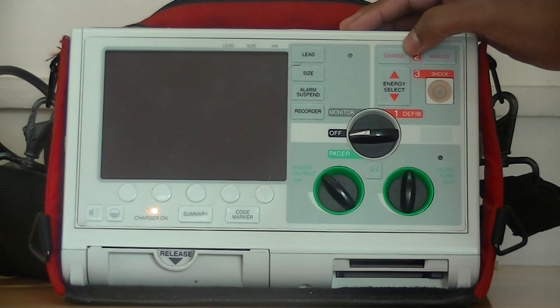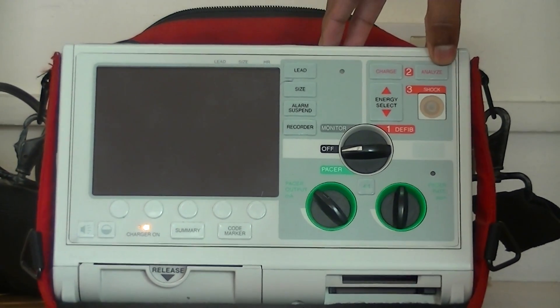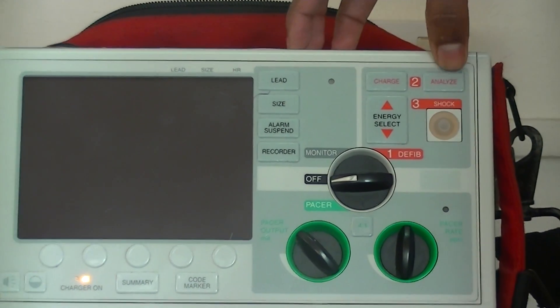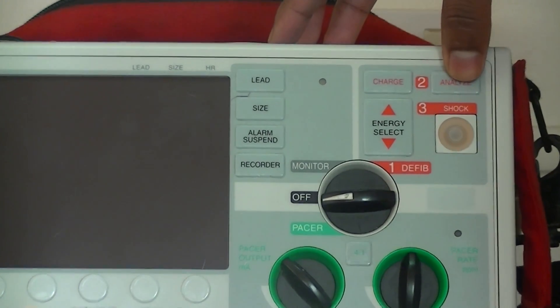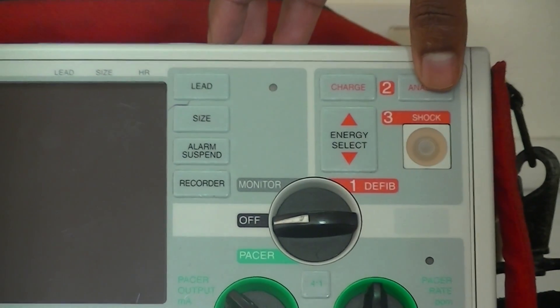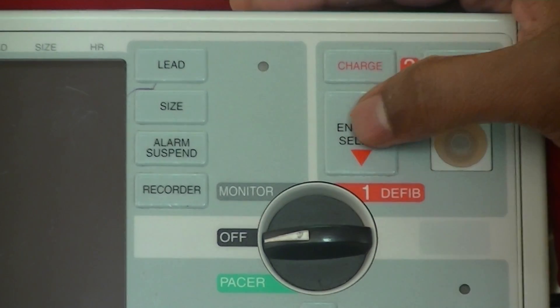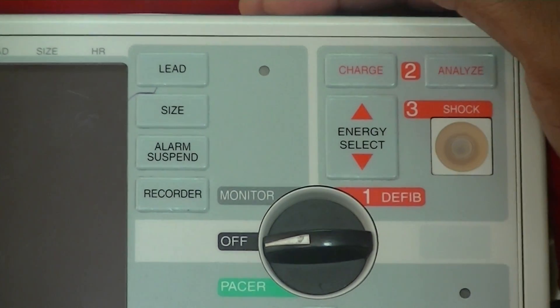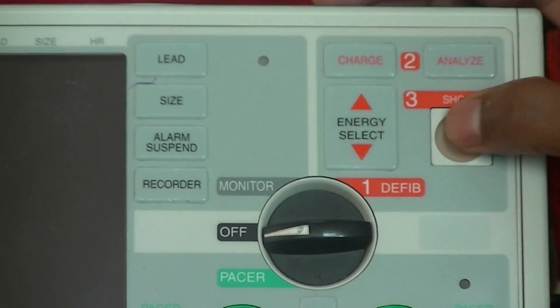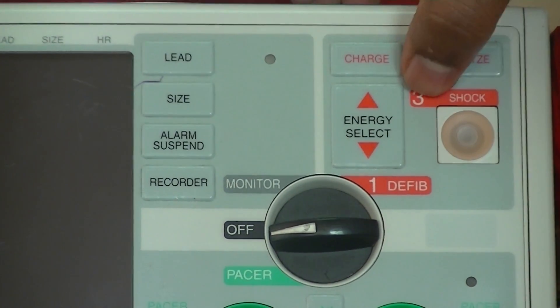On top of this, you can see the charge button. Next to that, you can see the analyze button. When you want to use this as an AED, you can press the analyze mode, where the monitor will prompt you what to do next when you attach the patient to the cardiac monitor. You can see the energy selection button where you can select your joules — how much energy needs to be delivered. And last is to press the shock button, which is number 3.